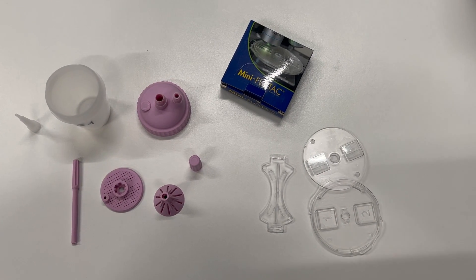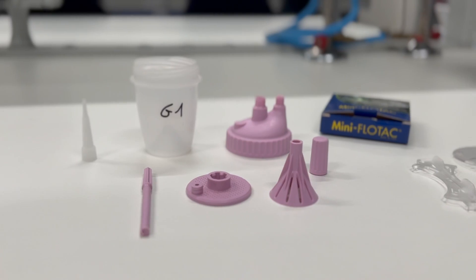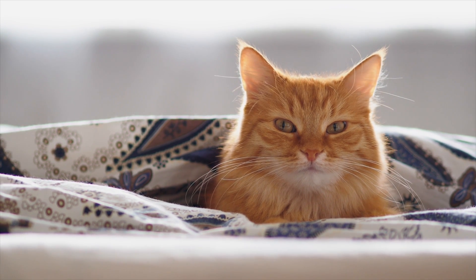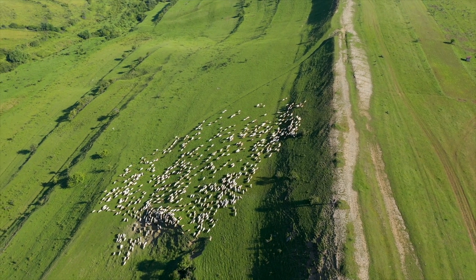The MINI FLOTAC is commercially available together with the FIL FLOTAC kit, allowing for the necessary preparation of the sample to be completed without additional equipment. There are two FIL FLOTAC versions: the FIL FLOTAC 2, calibrated for 2 grams of faeces and recommended for dog, cat, and human samples; and the FIL FLOTAC 5, calibrated for 5 grams of faeces and recommended for farm animals.